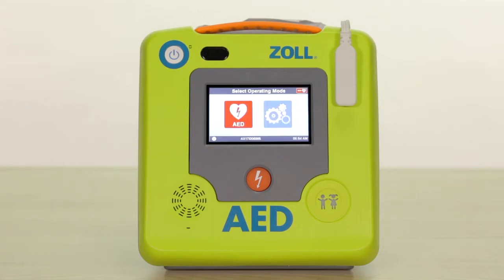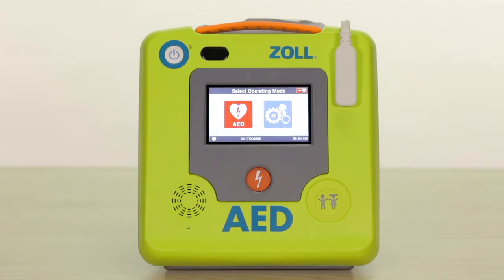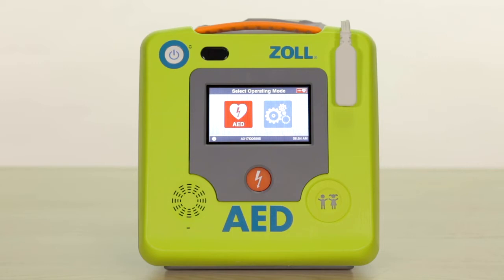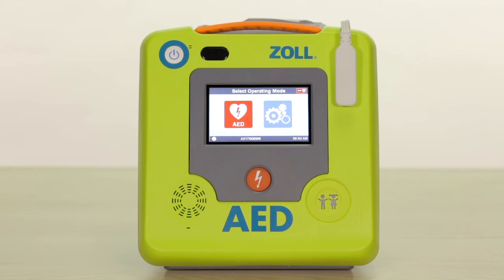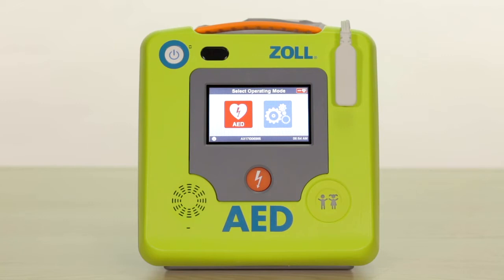The AED will now display two large icons: a blue gear icon and a red heart icon. When this screen appears, you will receive prompts indicating the type of AED you have, such as automatic defibrillator, and it will also indicate unit OK.